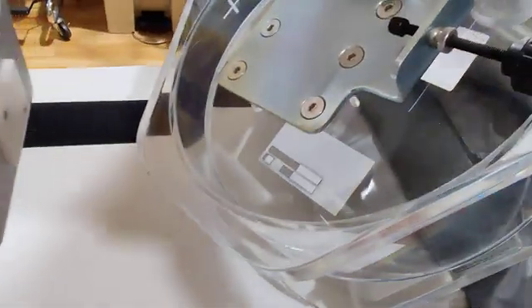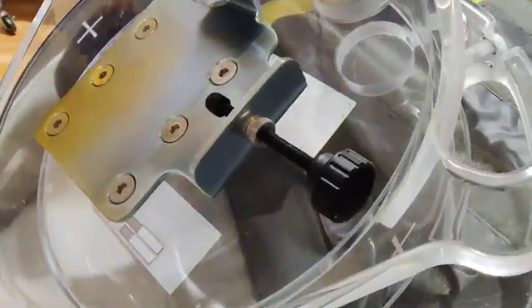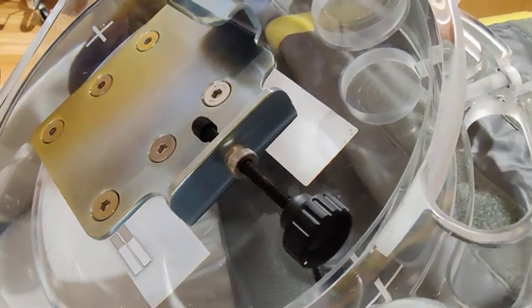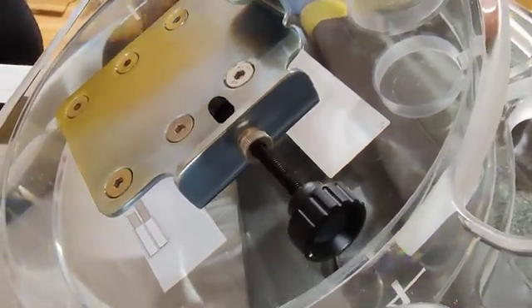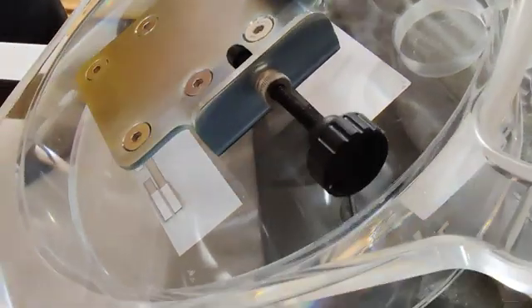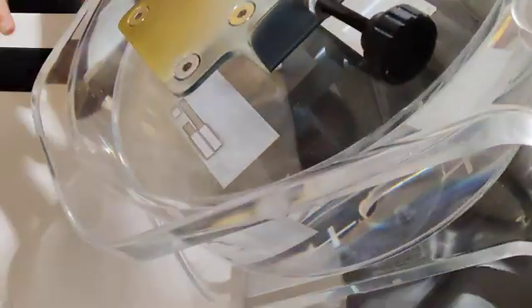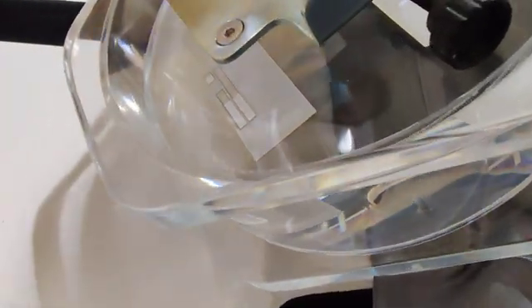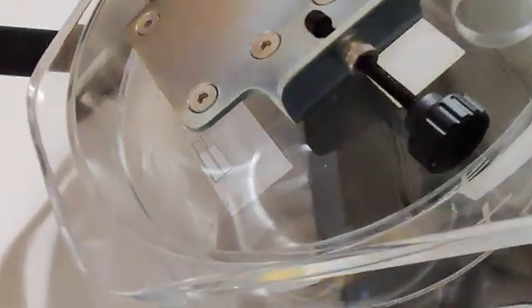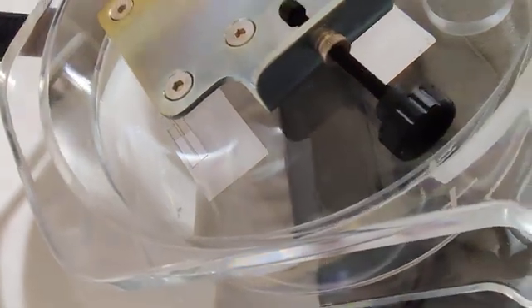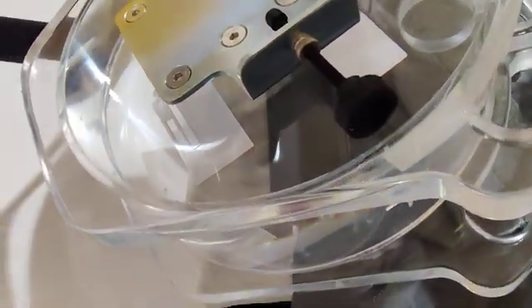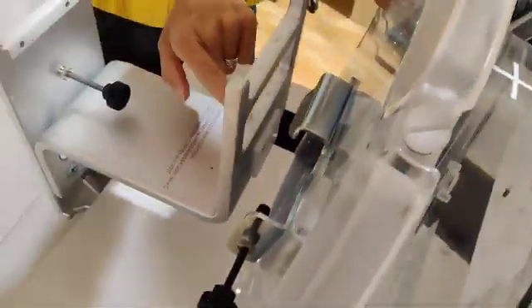These are called harmonized phantoms, if you ever want to know the actual name when you're calling service. So this is the harmonized phantom. This is the body phantom. It goes here, and the fact that it goes on the bottom rung is important.